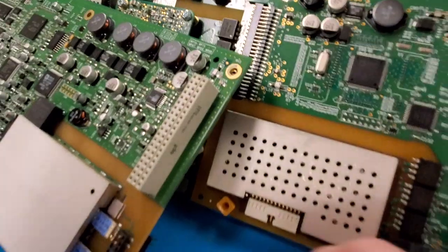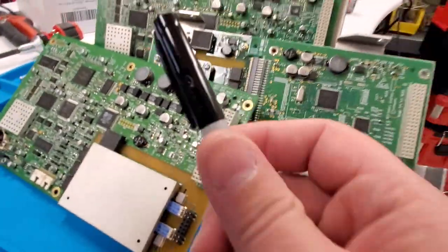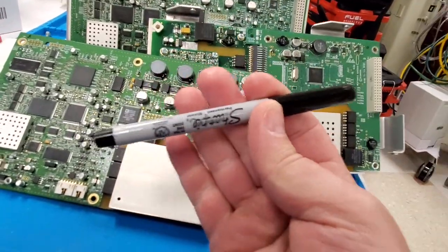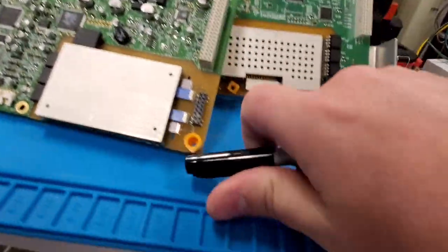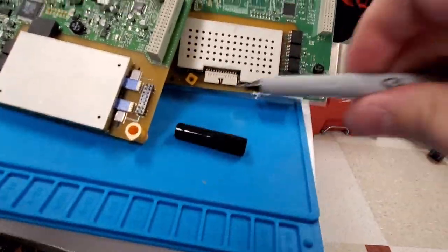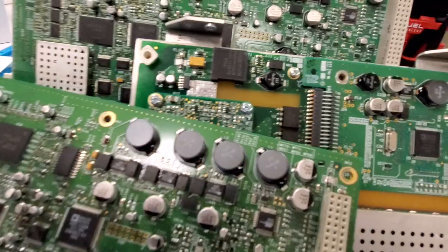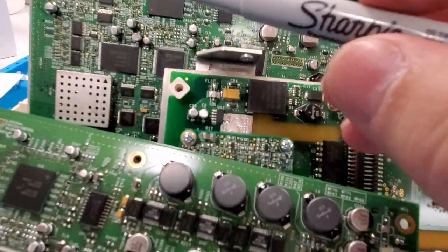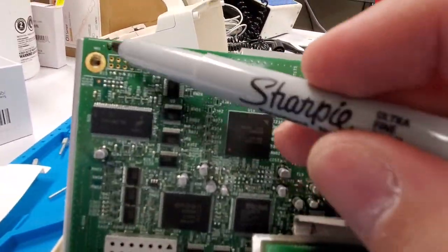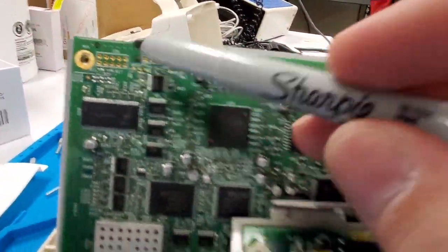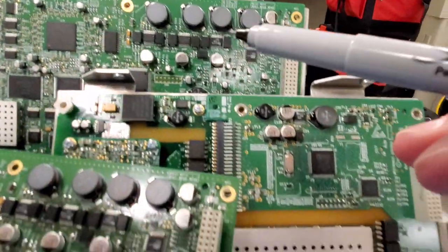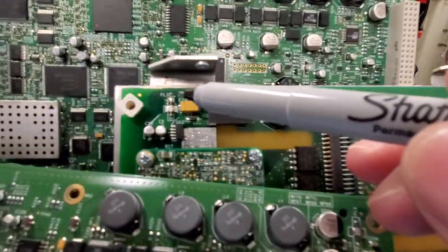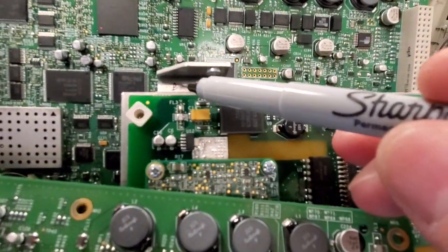Hey guys, I want to show you a quick pro tip on fixing medical equipment. First off, you should be using a fine tip Sharpie and annotate what's a good board and what's a bad board.